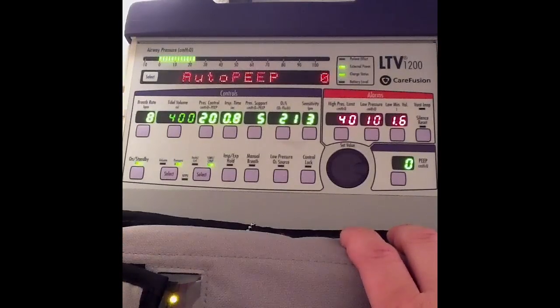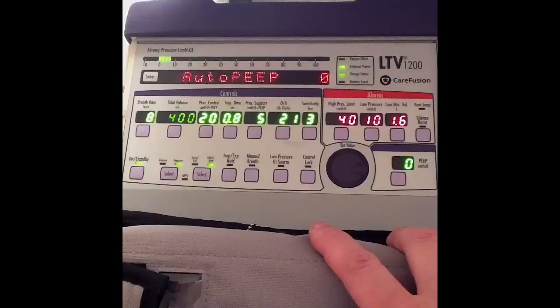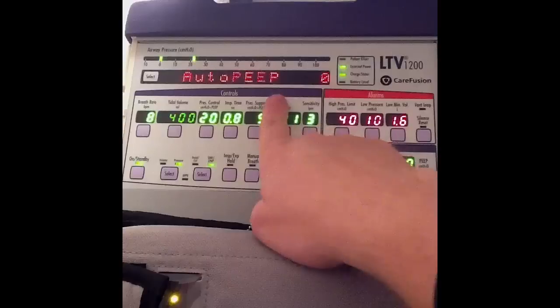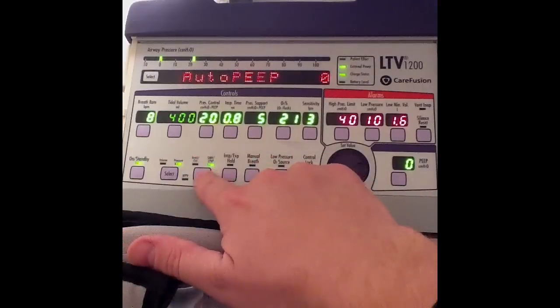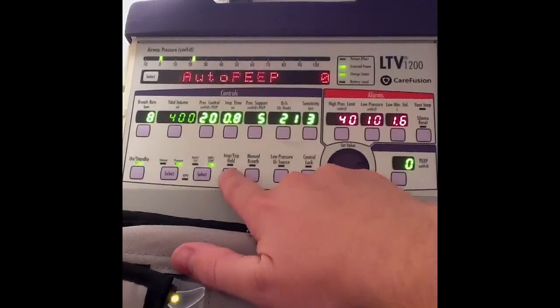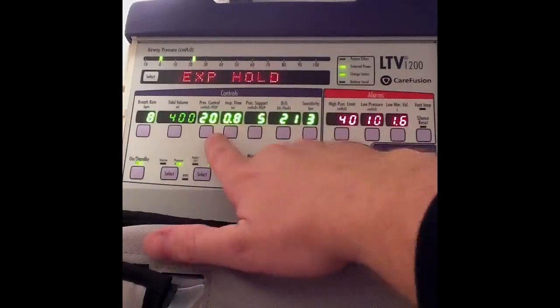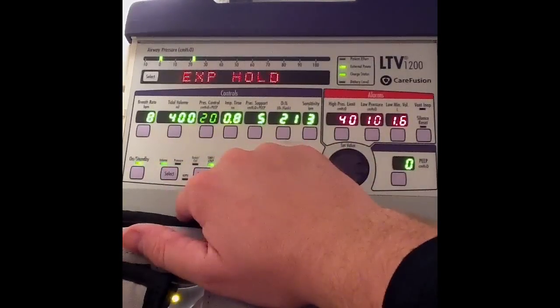Now let's assess plateau pressure. Plateau pressure is a good indicator of static lung compliance, and the difference between peak inspiratory pressure and plateau pressure gives a good idea of airway resistance — which can guide setting pressure support. However, in pressure control ventilation I cannot obtain a plateau pressure; there's no inspiratory hold option because the ventilator simply pressurizes up to the set pressure and stops. So I need to switch to volume control ventilation.